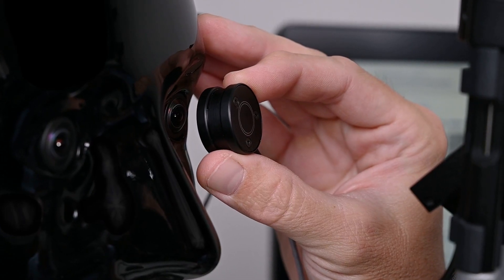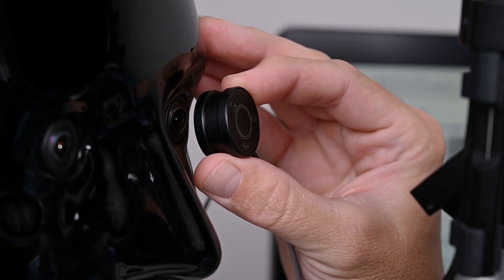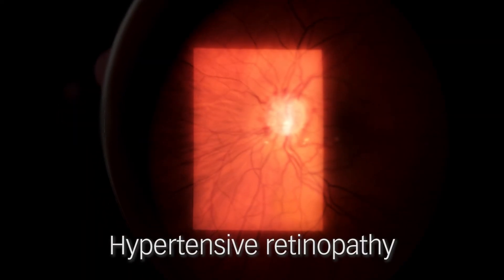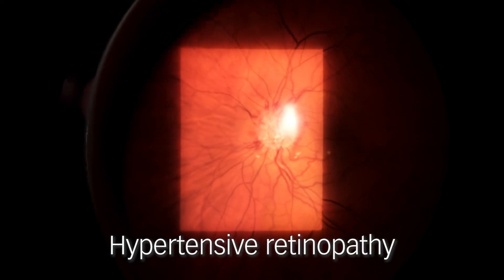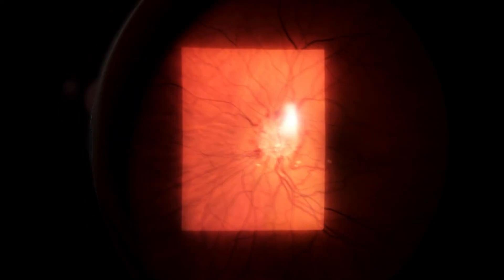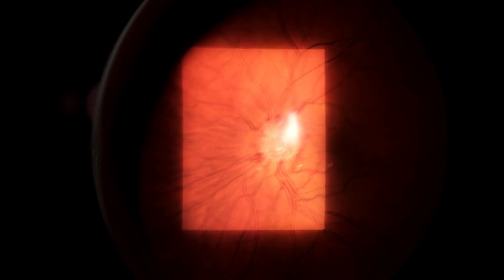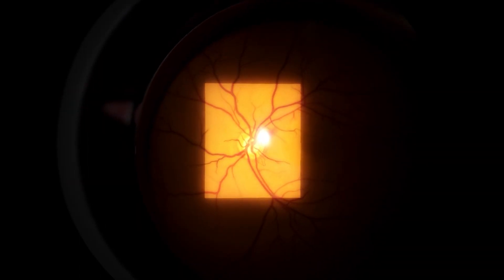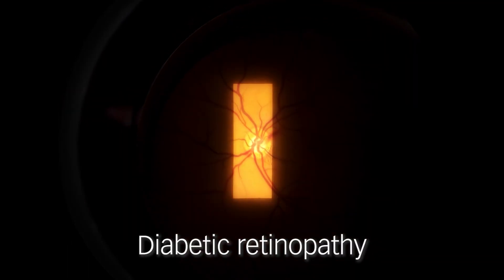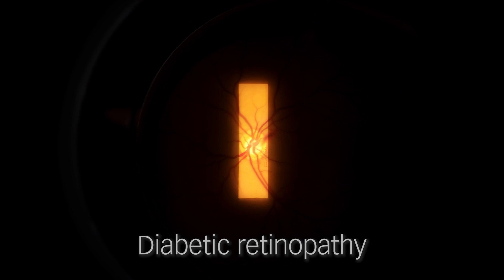For retina examinations, a 90D fundoscopy lens mimic is available in combination with a patient model head. Virtual patients present with retinal pathologies such as AMD, diabetic retinopathy, or optic disc edema.